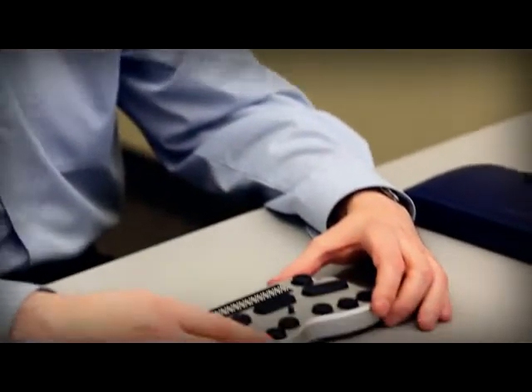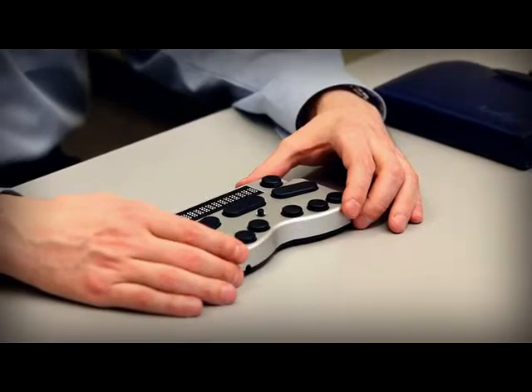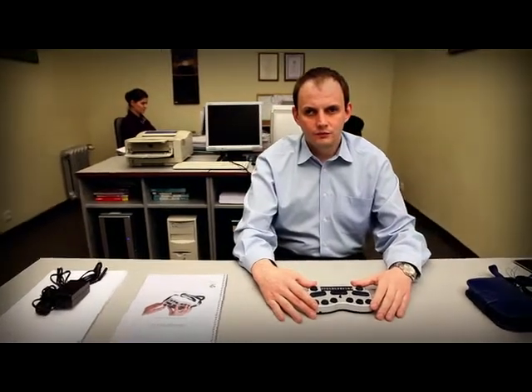We'd like to introduce you to Raffo and the Braille Pen 12. Braille Pen 12 is a Bluetooth Braille keyboard with a 12 cell Braille display for everyday use at home or at the office.